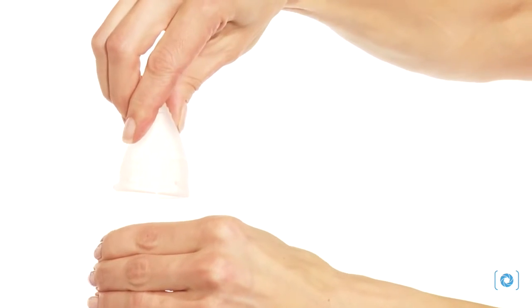The cup is now nice and snug, held in position by the seal formed with the walls of the vagina and pressure from the vaginal muscles. Your interior is superior and does all the work. You'll barely feel a thing.